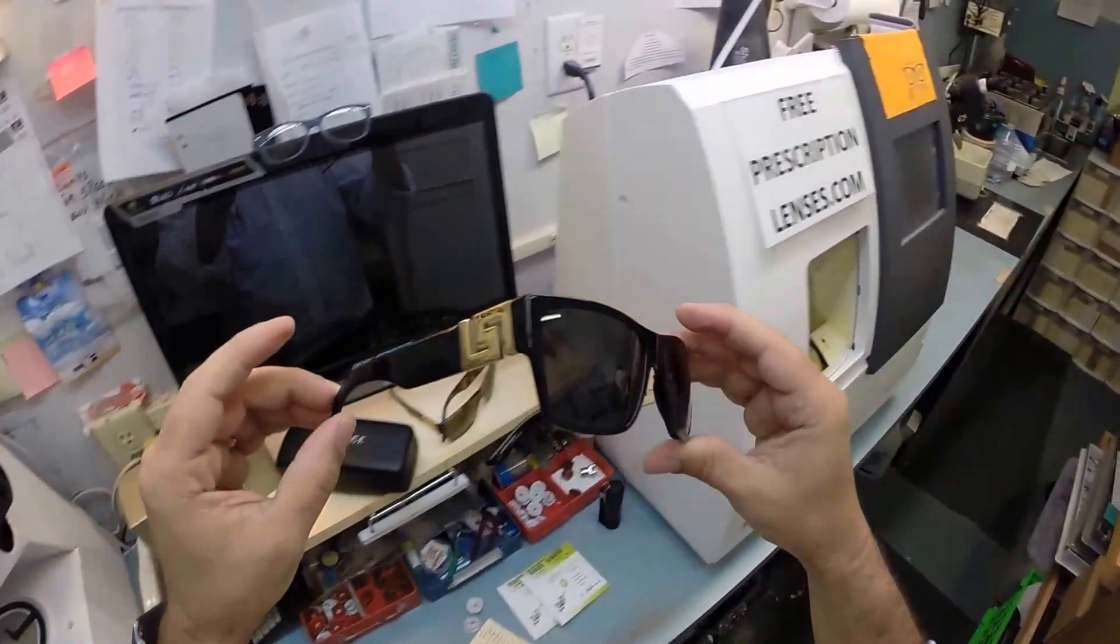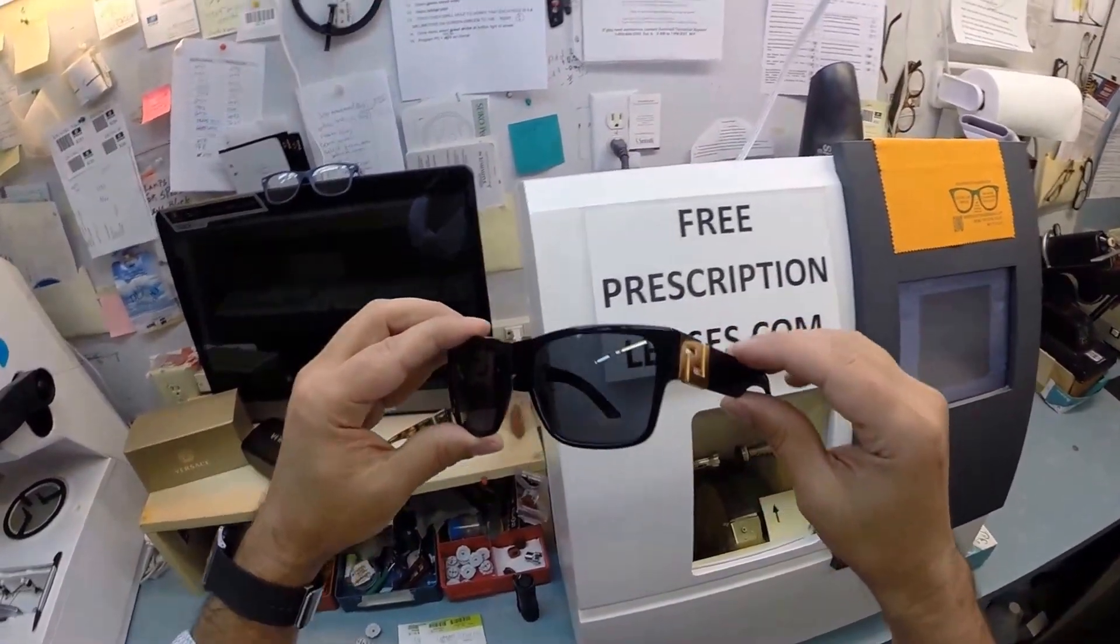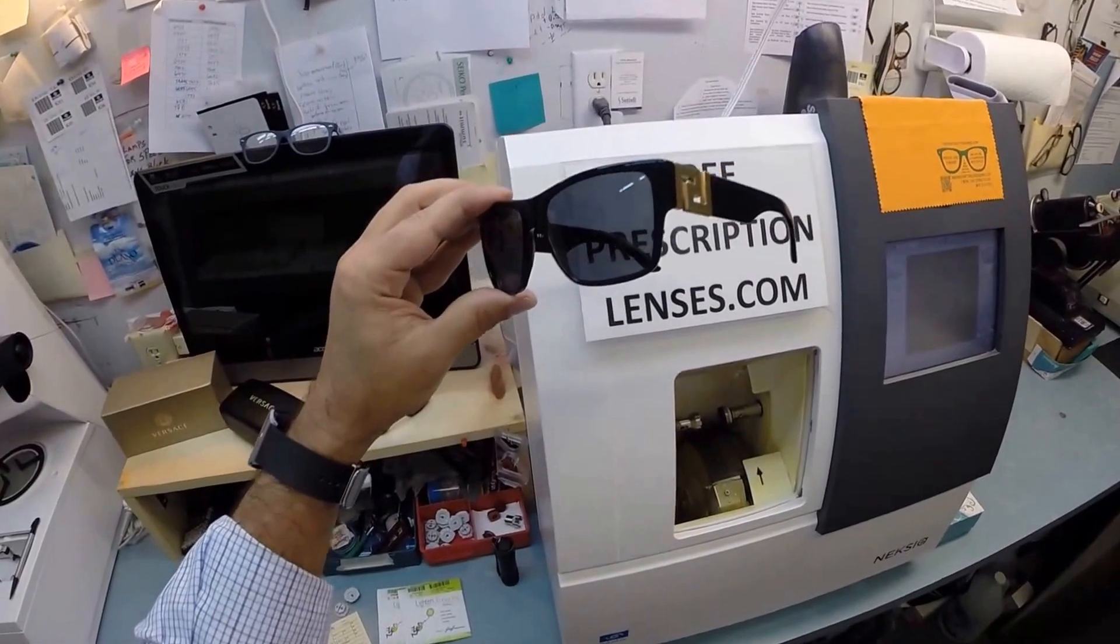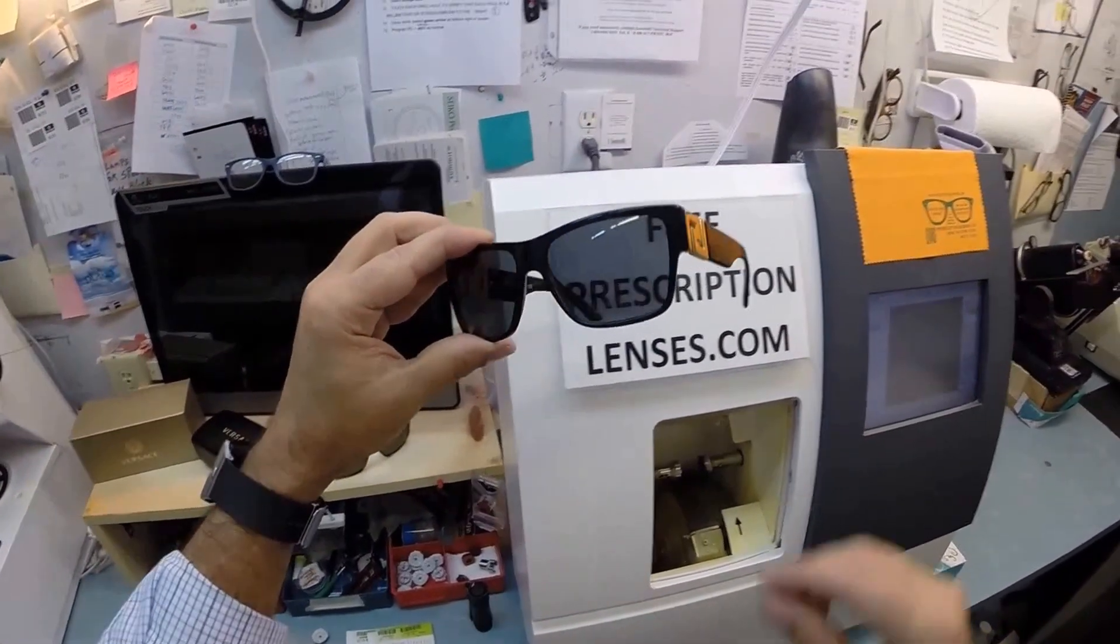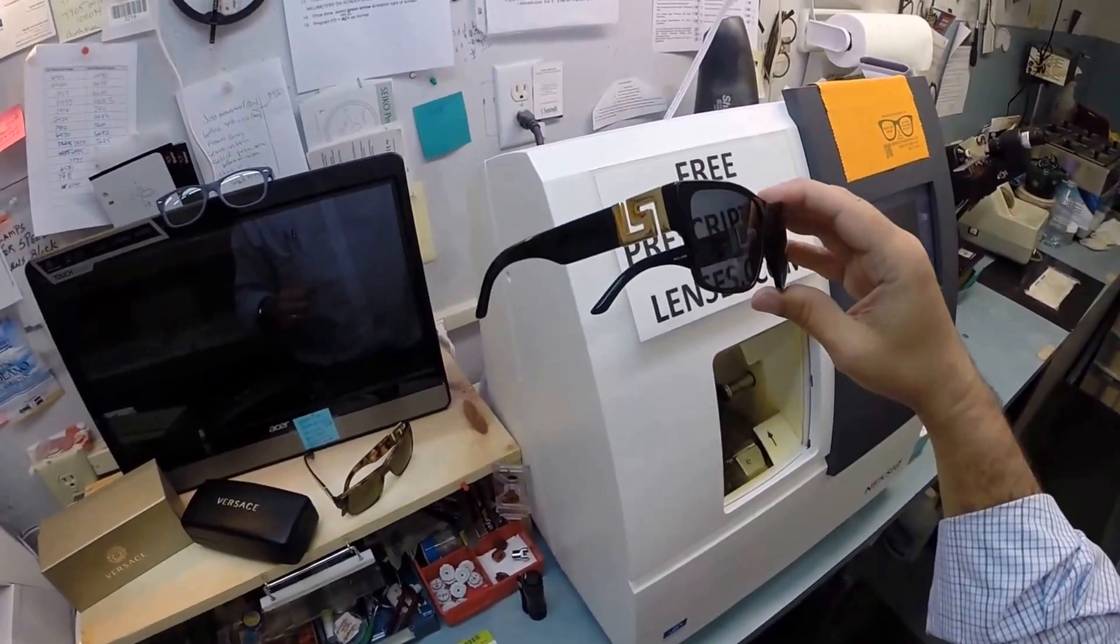Let me begin. He's been buying glasses from me for years and knows that some of the best styles come as sunglasses. I'm going to pop out the dark lenses and cut clear lenses for him, because for years I wore sunglasses with clear lenses in them too.